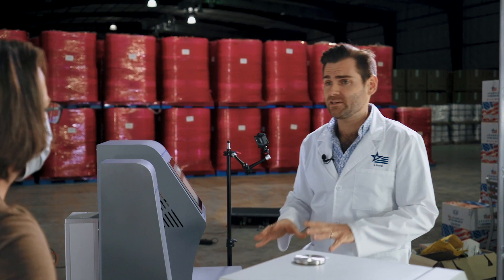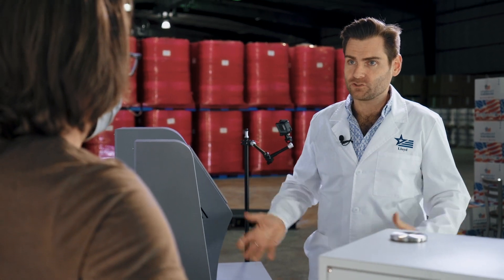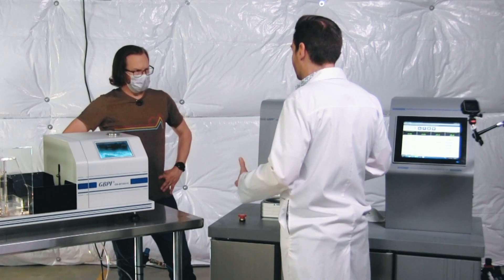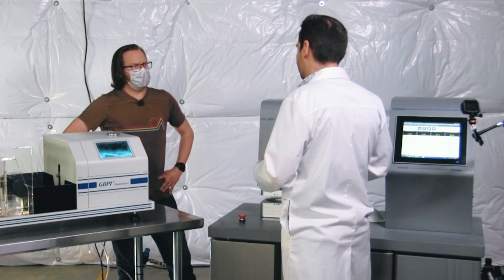Yeah, so this is a PFE testing machine. That's Particulate Filtration Efficiency testing machine. And so what it does is it shoots tiny pieces of salt, microscopic, that you can't see. And then it measures both sides, how much got through, how much did not get through.